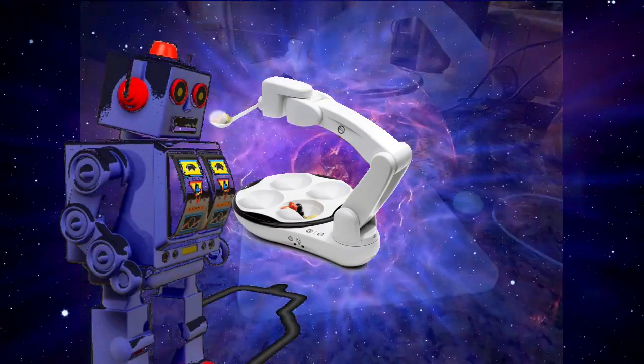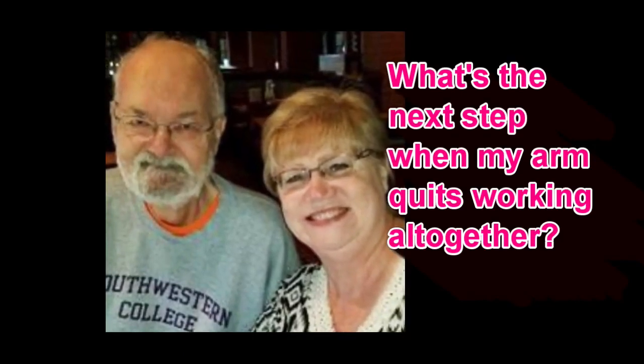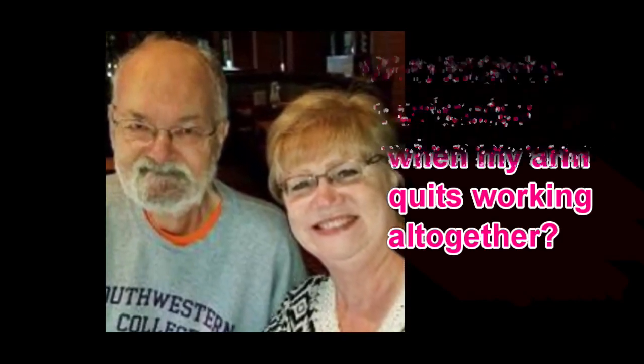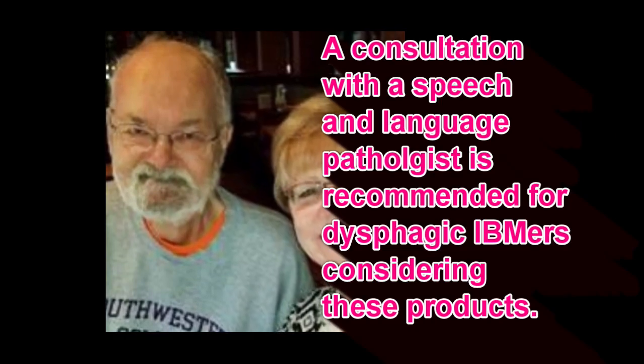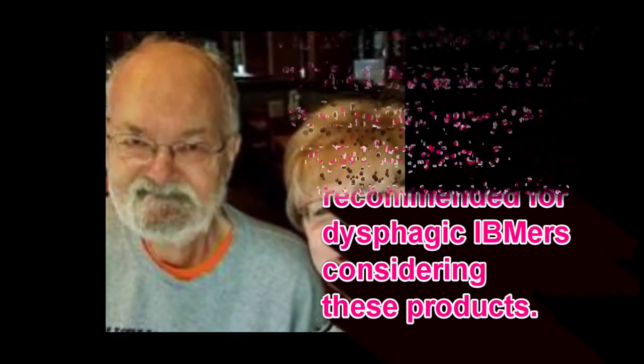As I'm continuing to develop fatigue in my eating arm and can visualize the near-future inability to lift any utensil to my mouth to feed myself, I ventured off in search of a solution. Some people might suggest to just let my spouse feed me, but I sought a method that would still allow her to enjoy her own meal rather than having to interrupt her mealtime when feeding me.